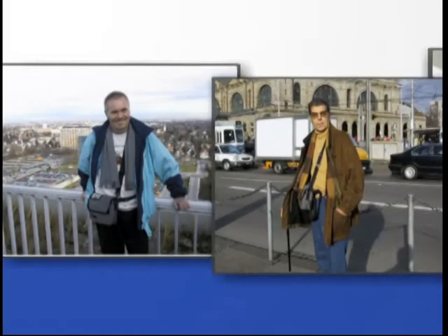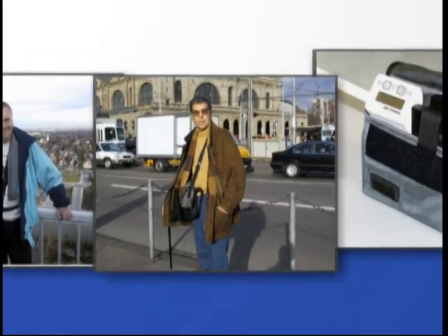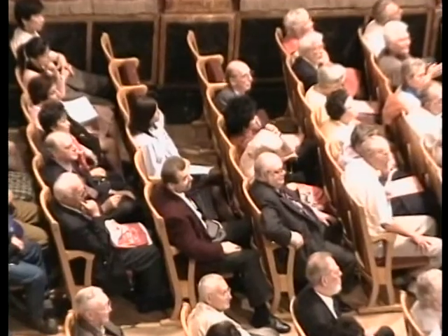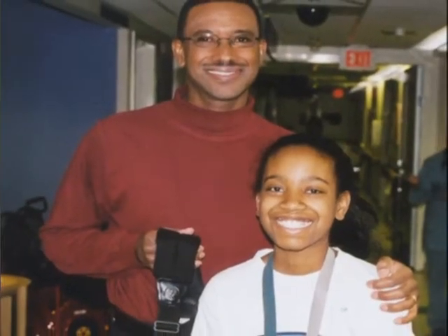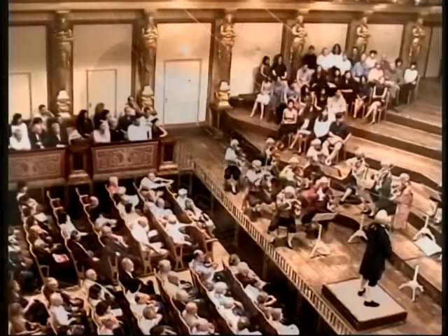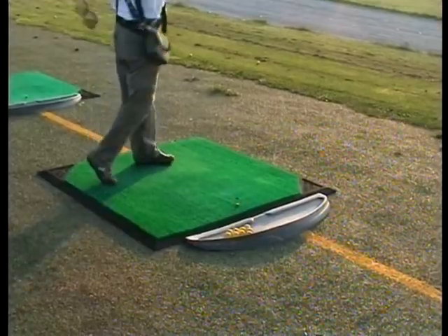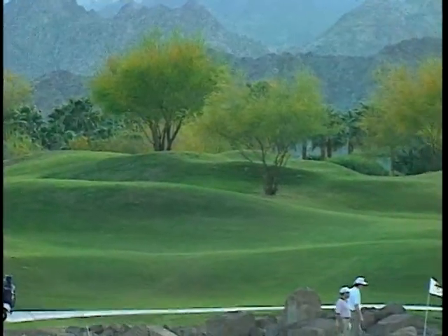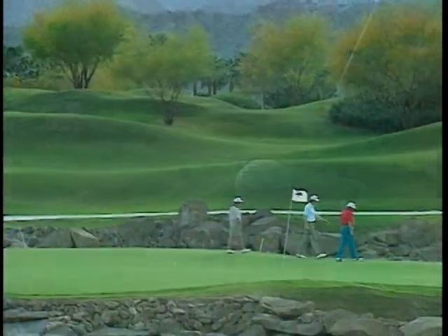The VAD is operated by battery power for up to 12 hours and is virtually silent, leaving most other people unaware of its existence. Patients can enjoy their friends, family, and most normal daily activities, whether attending a concert, participating in sports, or vacationing. The HeartAssist V VAD is designed to give the patient the freedom to participate in the best that life has to offer.